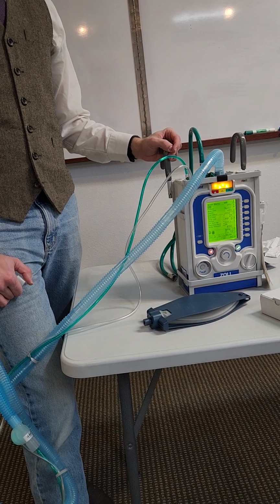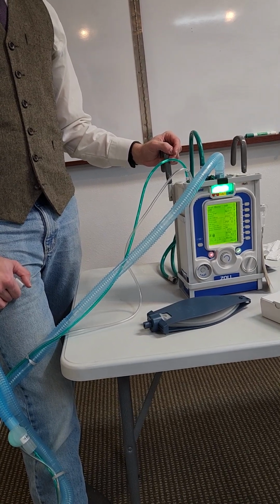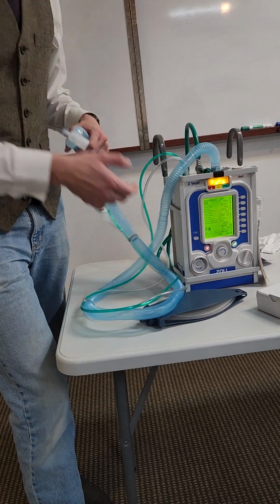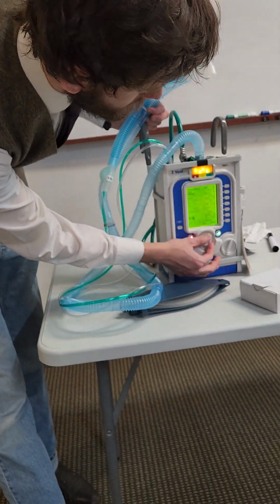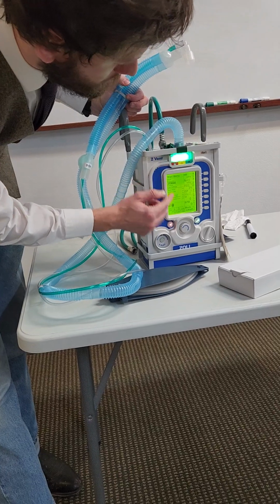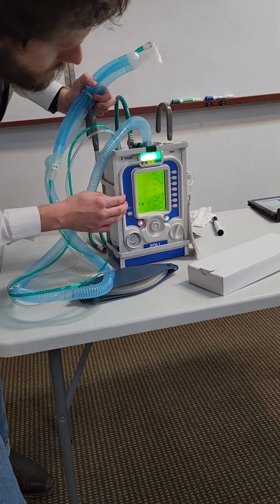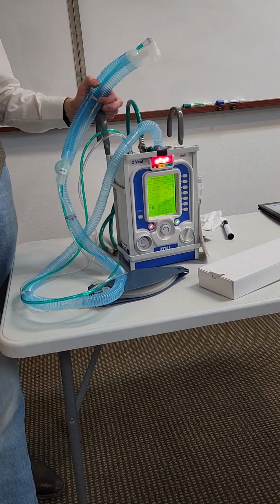Do you have to turn it on, turn it off? Yes. So you turned it on, it's in adult. How do you move it to CPAP? It's a twist down to mask CPAP, and you turn it on, turn it off? So now what we do is we just green select. And now it's in the CPAP mode.